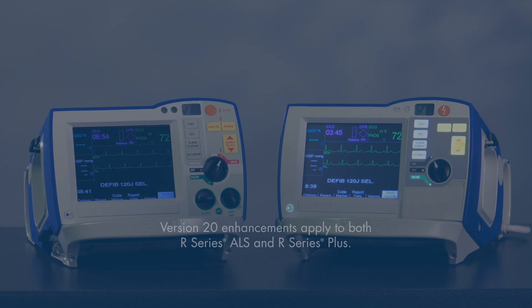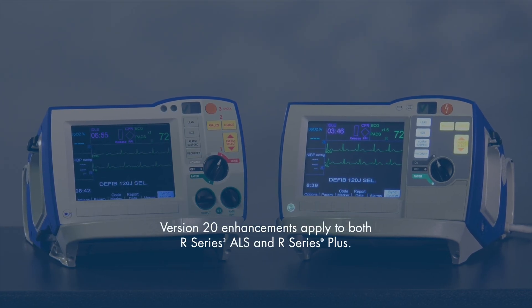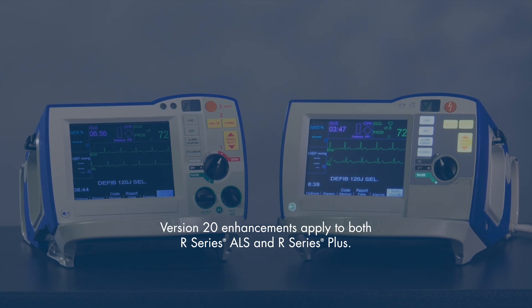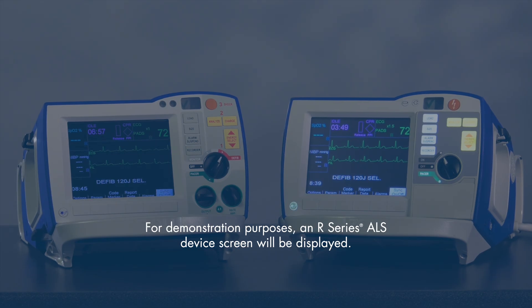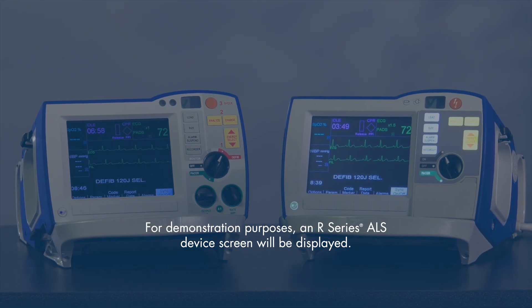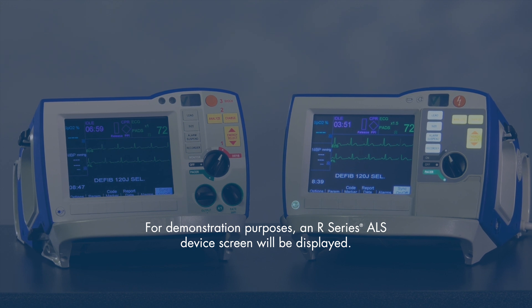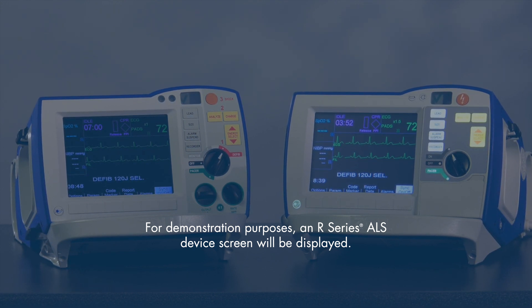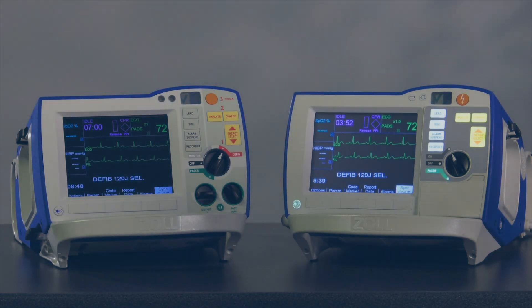With the version 20 software release for the R-Series ALS and R-Series Plus, Zoll has added new features and enhancements that improve the functionality of the device, simplify Code Blue workflow management, and integrate AutoPulse data into case review reports. This video will provide detailed descriptions for each of these improvements. Your facility will inform you which features have been configured to your device.